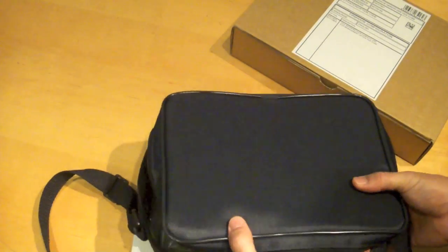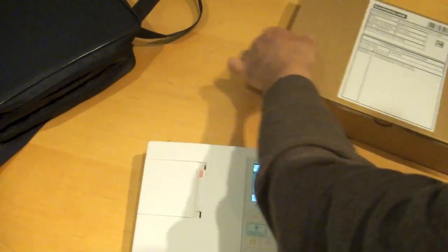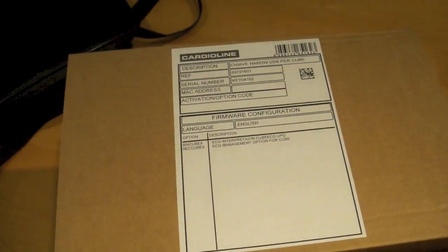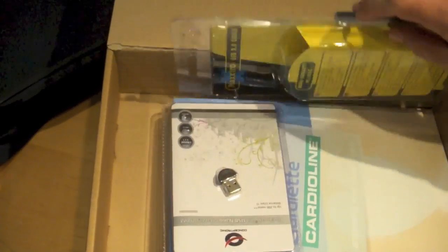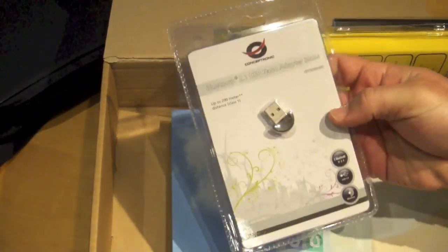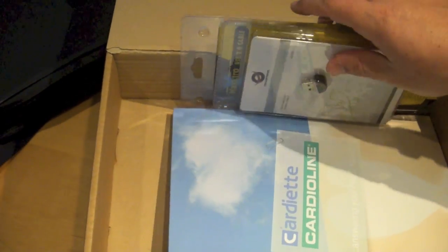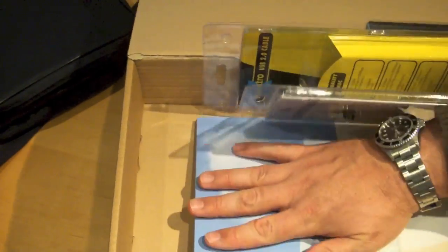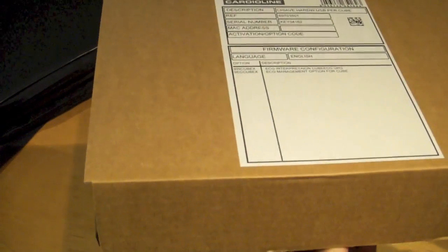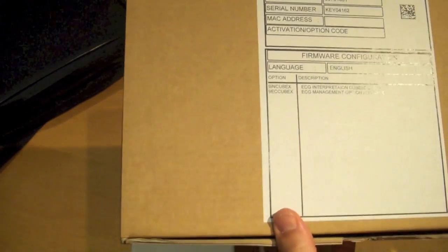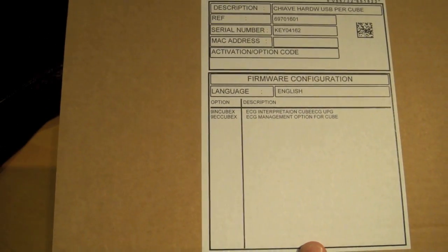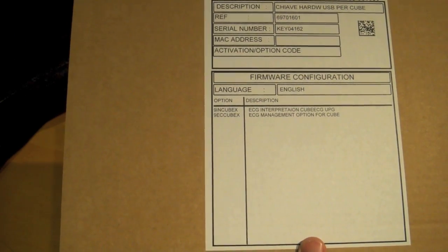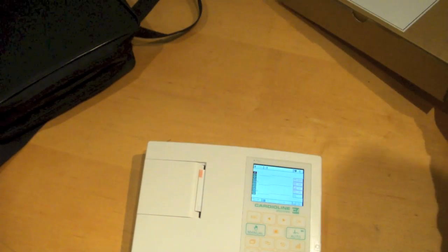The Bluetooth version of the product will come with the Cube software suite, and the Cube software suite consists of a USB cable, a Bluetooth dongle just in case your computer does not include one, and the actual software and instruction manual. We will provide you a full video in another YouTube clip for an overview of the Cube ECG software.